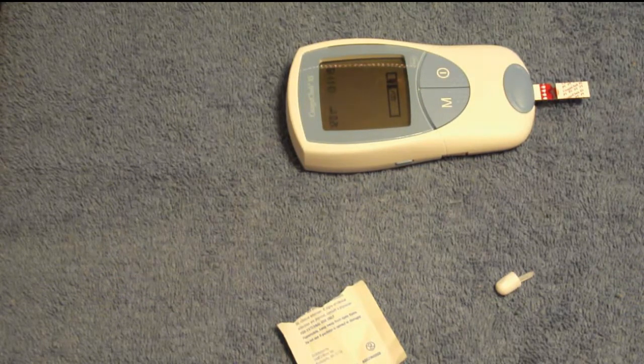Now, based on my research and all the dealings I've had with doctors — if you've had a heart valve replaced, you want it between 2.5 and 3.5. If you've had a stroke, you want it between 2 and 3. But I'm not a doctor, so don't quote me — check what your doctor wants. And hers is at 2.0.